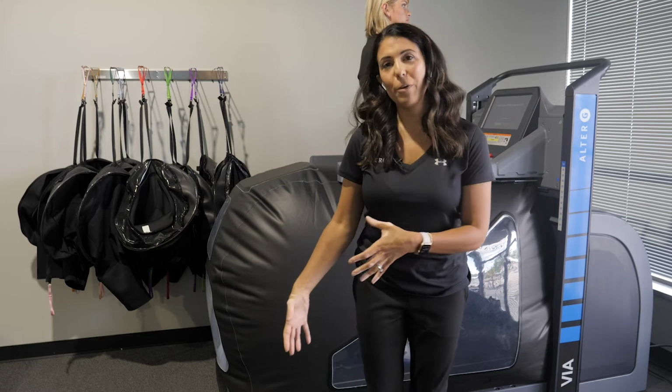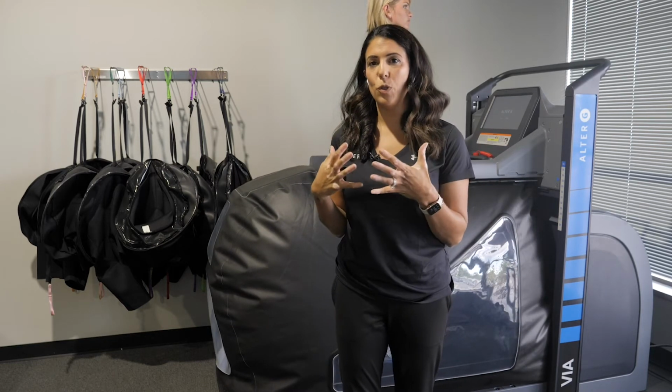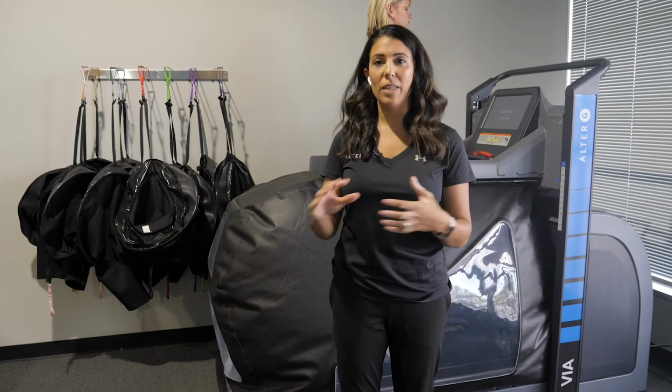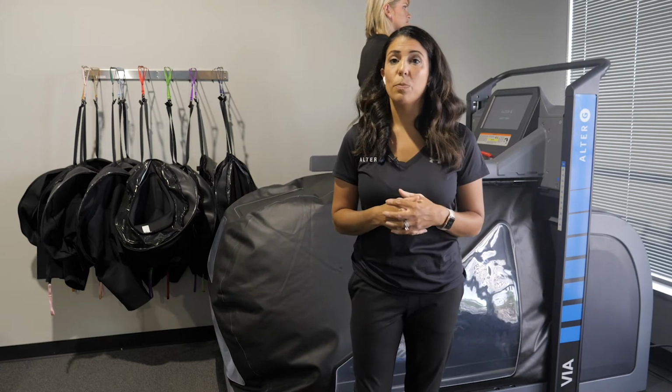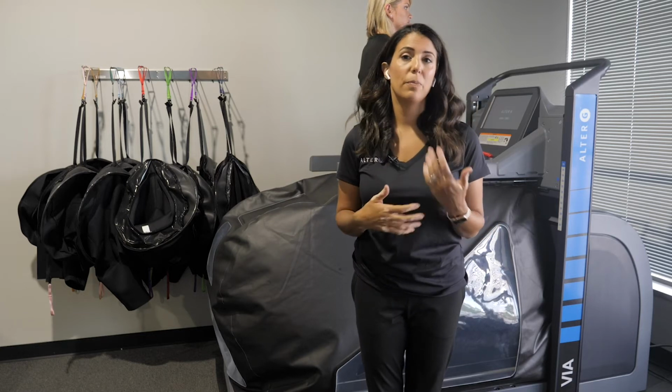If we did it over ground with them, we might be holding on to them a little bit too tight. We might be providing a little bit too much protective measures. But on the treadmill, because we can unweight them and create this nice fall-safe environment, we can practice these activities better or in a higher level way and allow them to start to develop their own balance reactions.